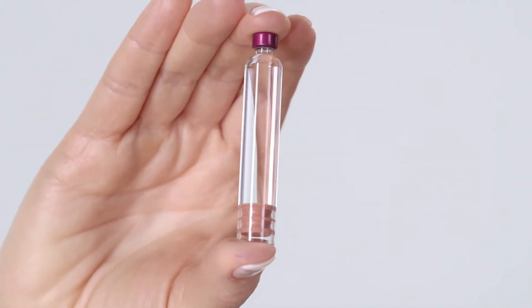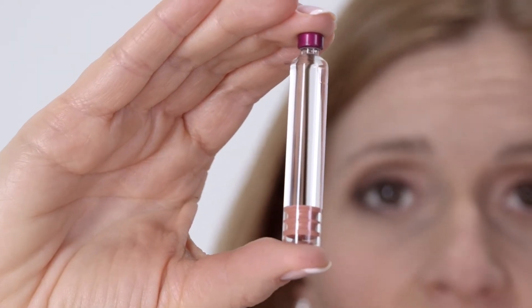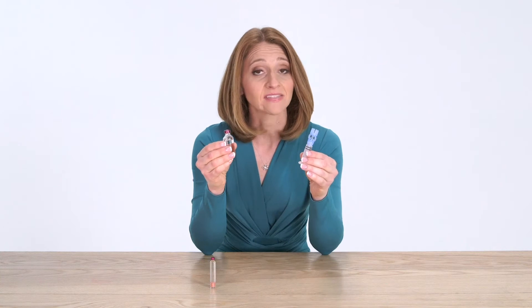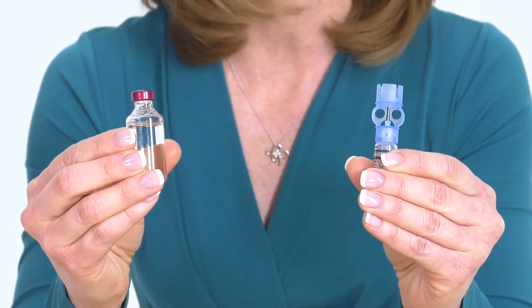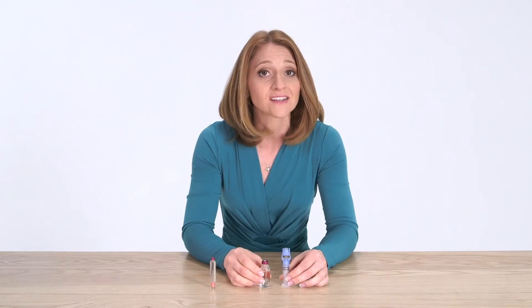One of the nice unique features of SNAP is the use of a 300-unit pre-filled glass cartridge. With manual pumps you have to get this into this at the appropriate amount for two to three days worth of insulin without air bubbles or making mistakes. That is often time-consuming and challenging. With SNAP all of that goes away.